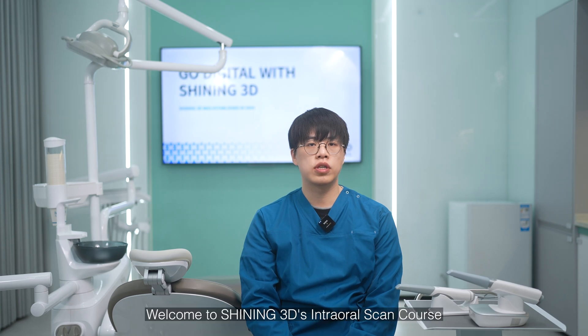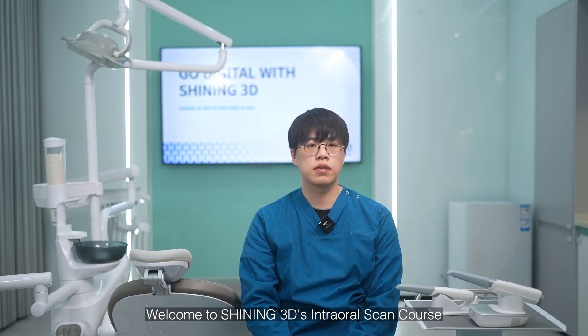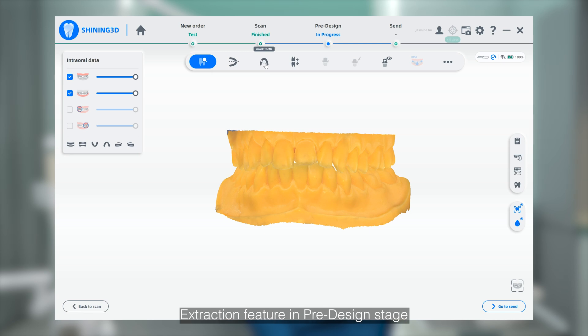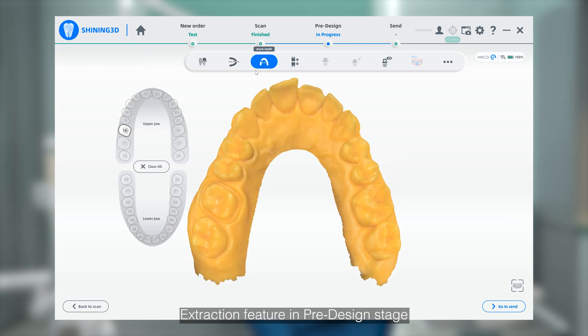Hello everyone, welcome to Shining 3D's Intraoral Scan course. In this video, we will introduce the Marginal Extraction feature in the pre-design stage.